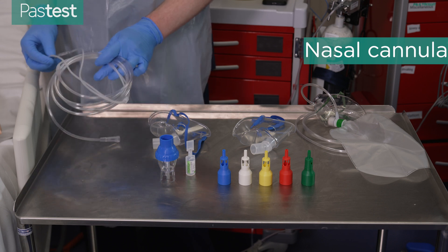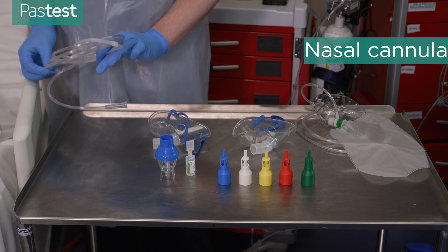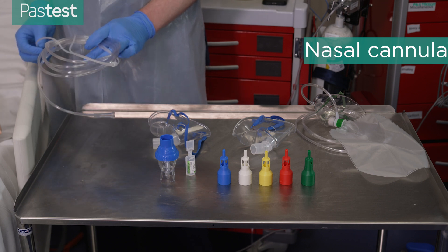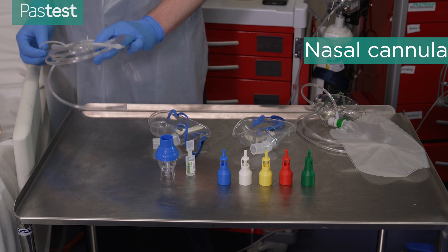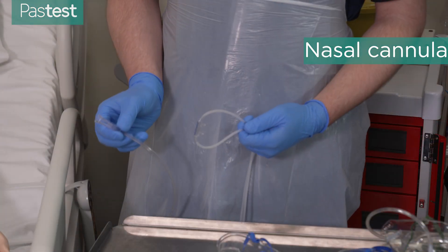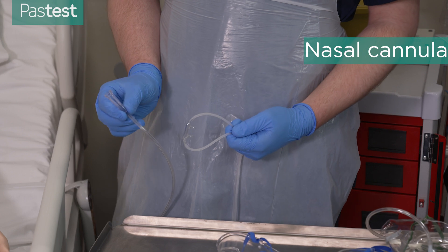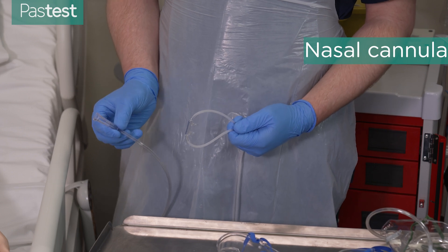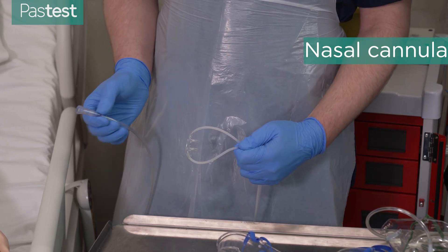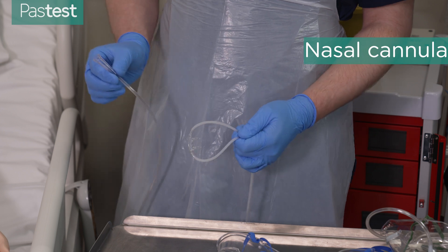They can go up to 36 percent at 6 litres per minute flow rate, but you usually want to use humidified oxygen at that level because it can cause quite a dry nose. This end connects to an oxygen cylinder or a flow meter on the wall, and this end has the two nasal prongs that go into the patient's nose to deliver the oxygen.